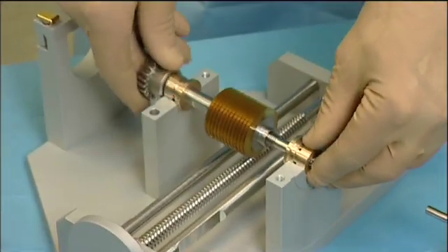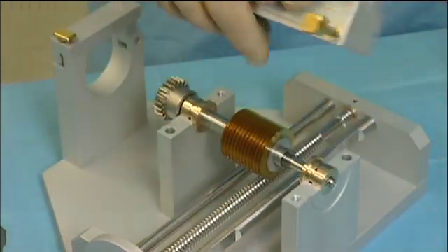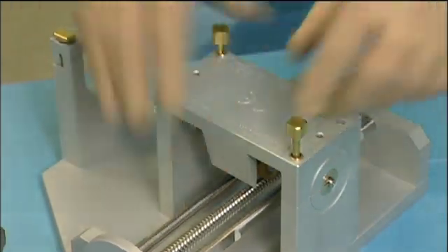Here, the blades axis is put down in the MEEK machine and the bridge is placed over it and tightly secured.